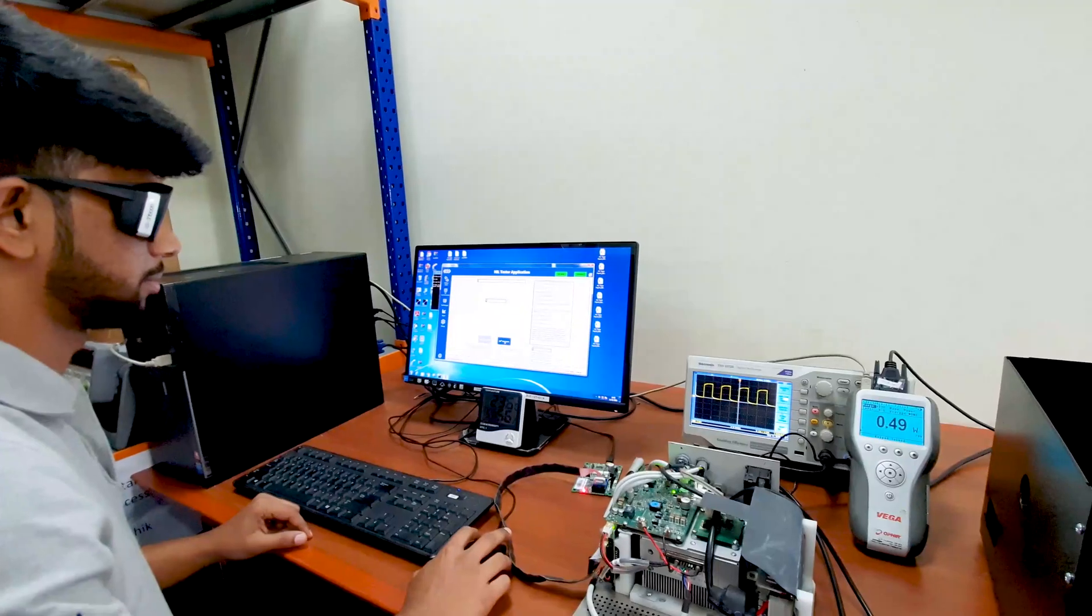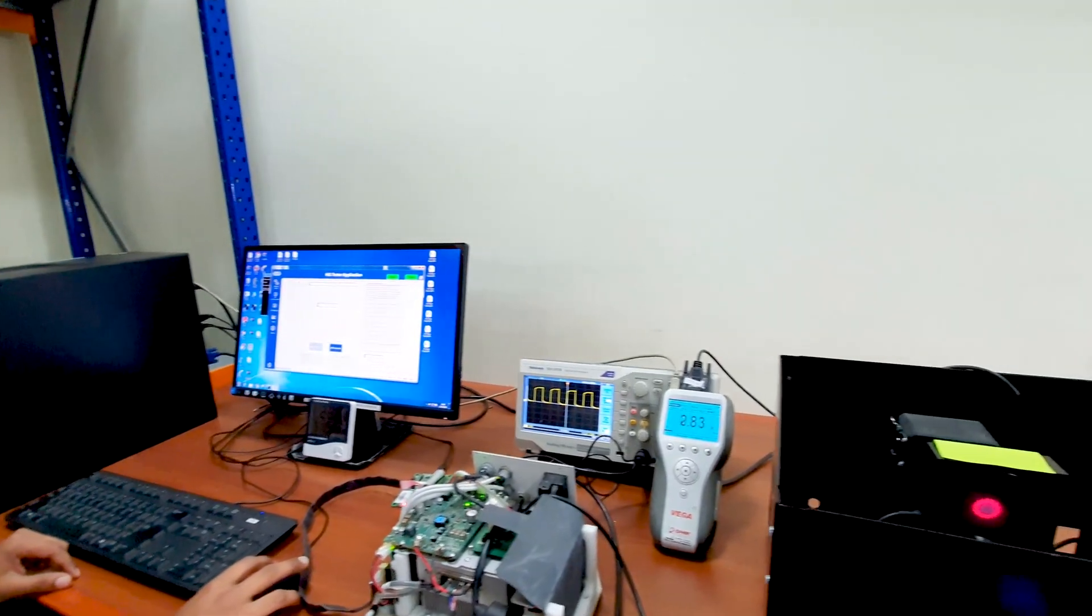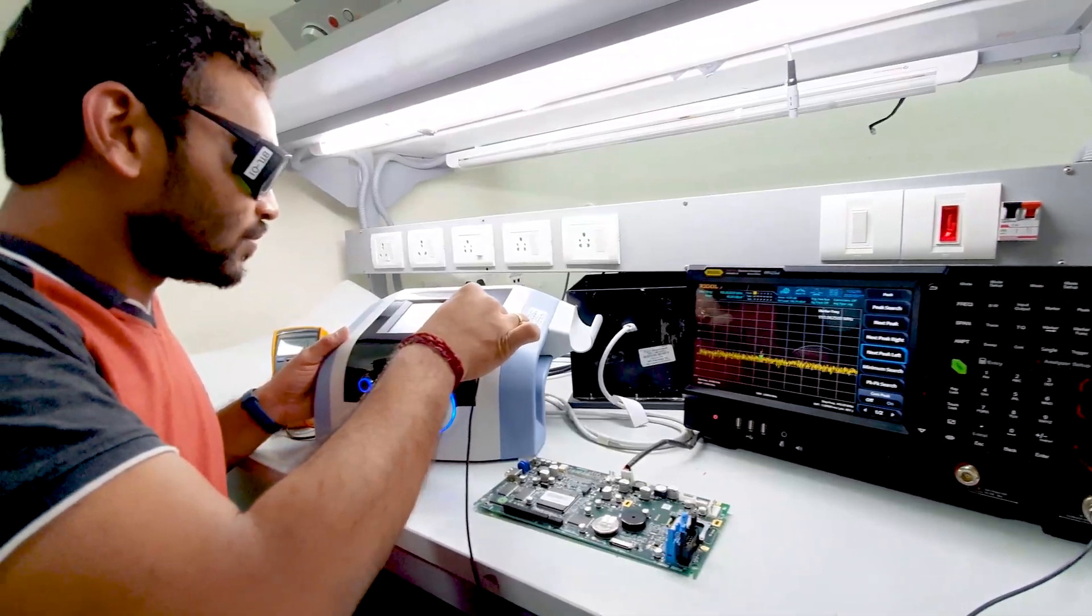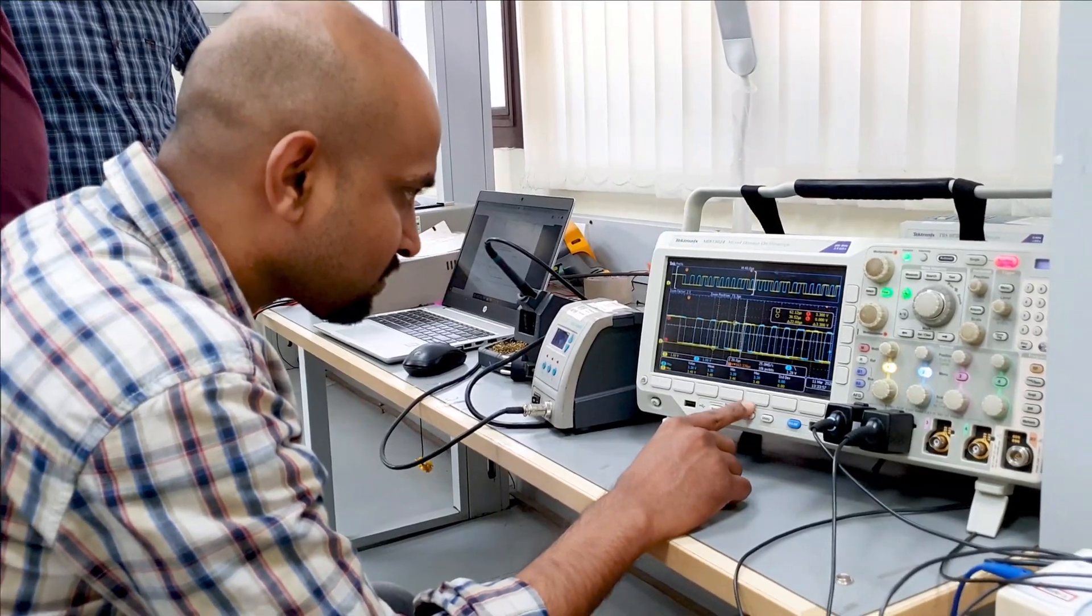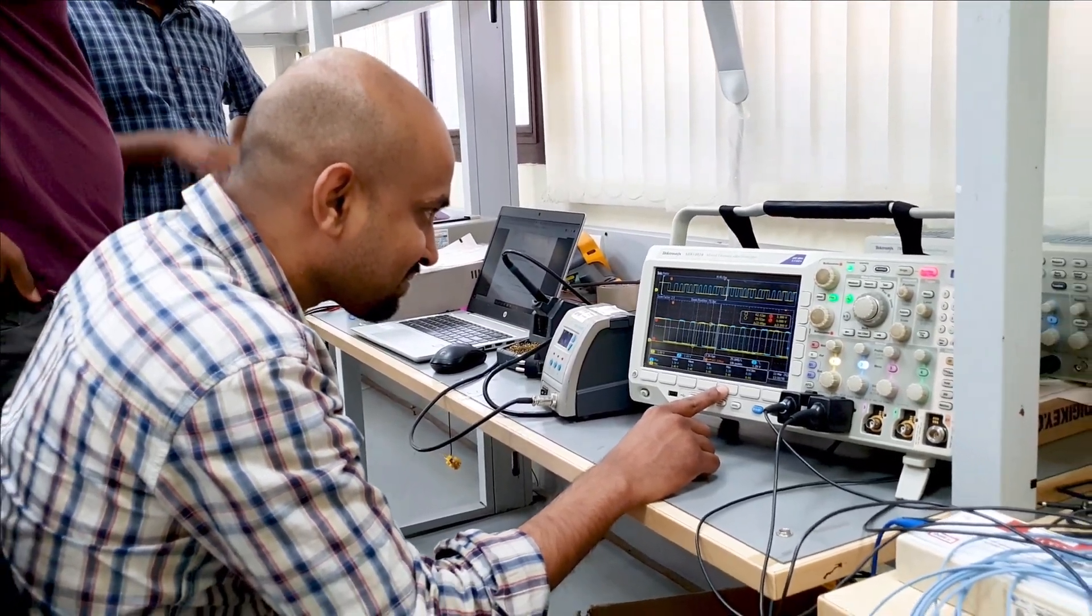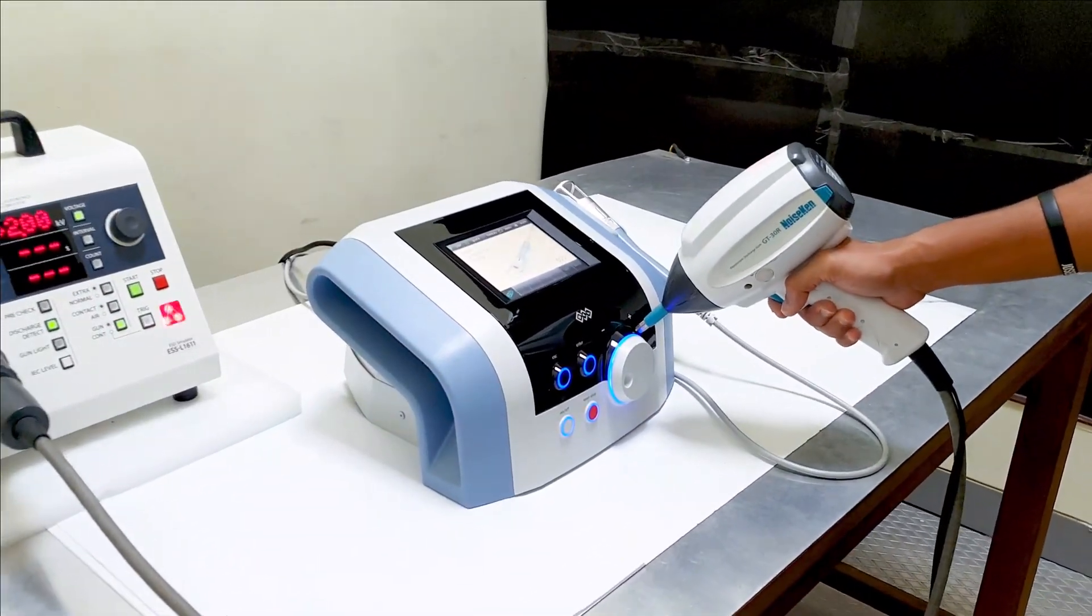As a verification and validation team, we represent the customers by walking in customers' shoes. We never compromise on safety or quality of the product to ensure that we have a well-established testing infrastructure and we follow various testing methodologies like safety, functional and performance testing.